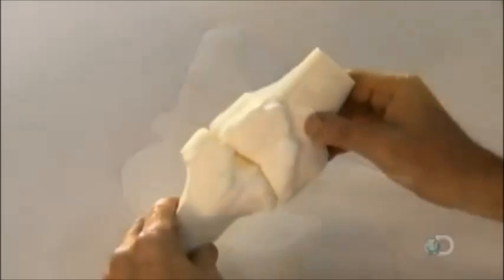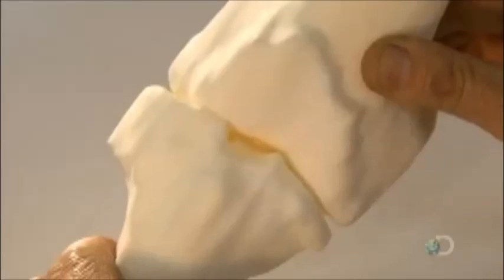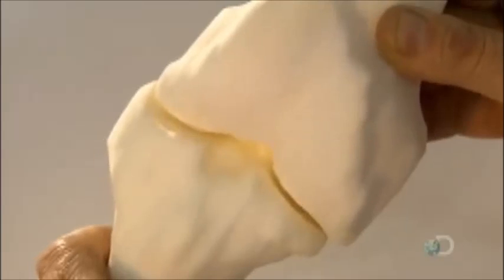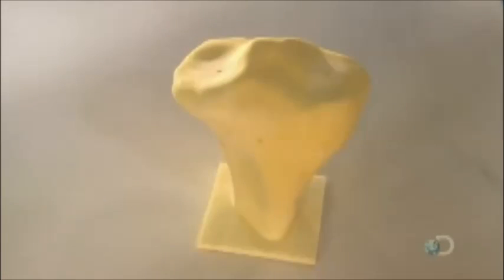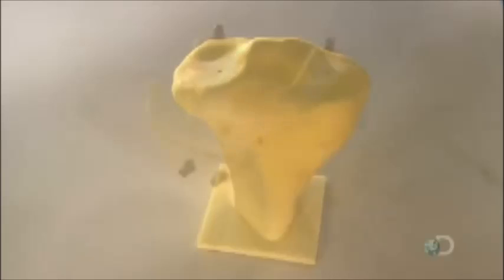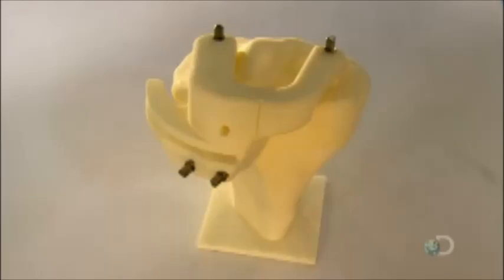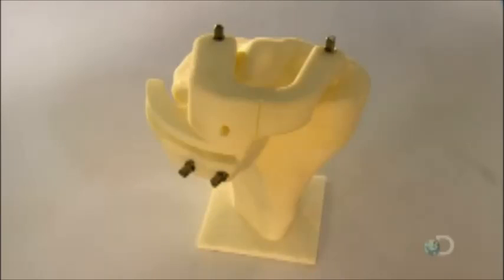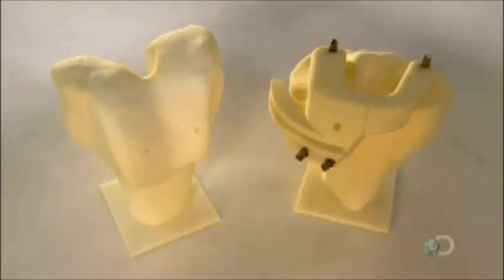This model shows how the femur and tibia form the knee joint, and how the surgeon secures the customized template onto each of these bones. Thanks to these devices, the surgeon doesn't have to figure out the bone cuts on the fly in the operating room.